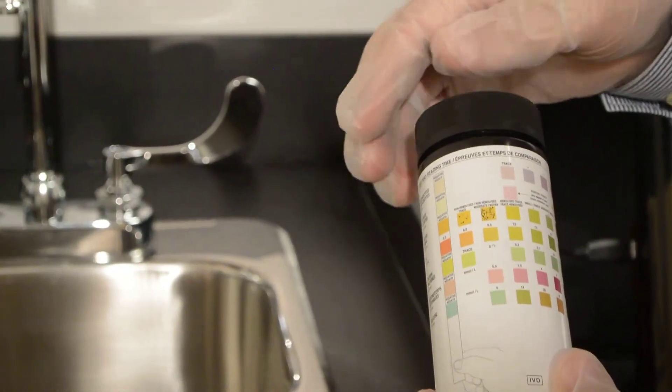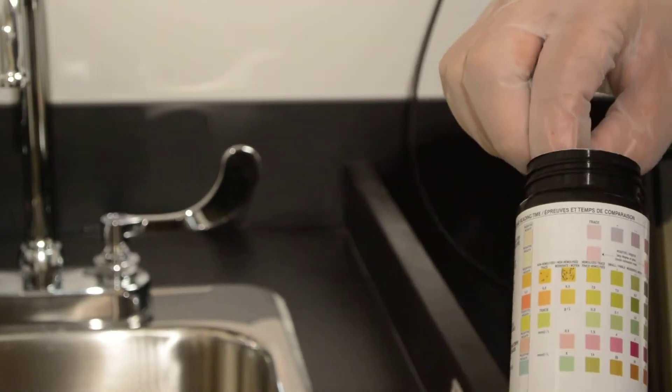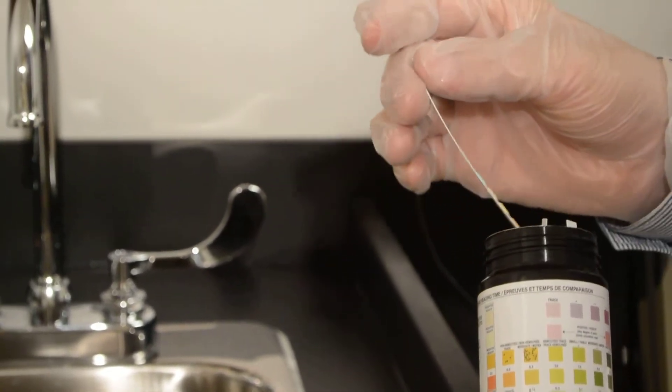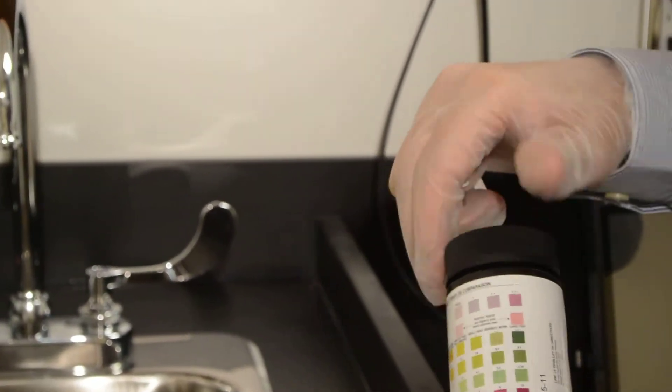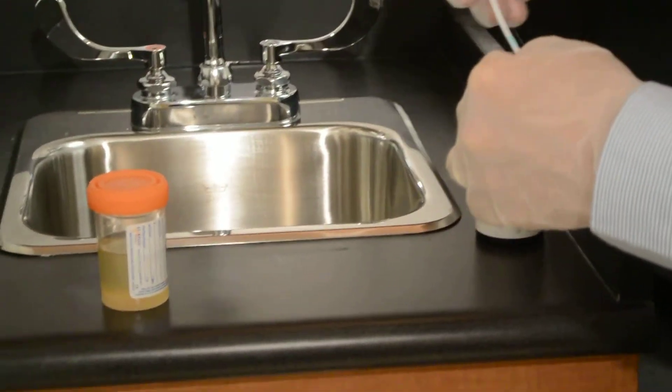To do the test, you open the container, which contains multiple strips, and take one. Make sure you wear gloves because you're dealing with body fluids, and hold the little strip.